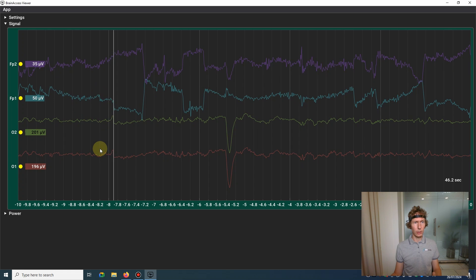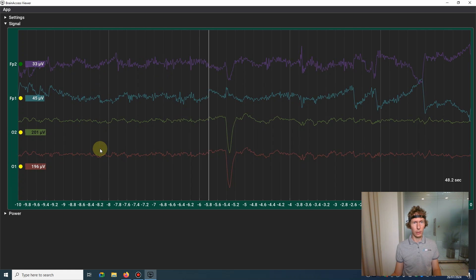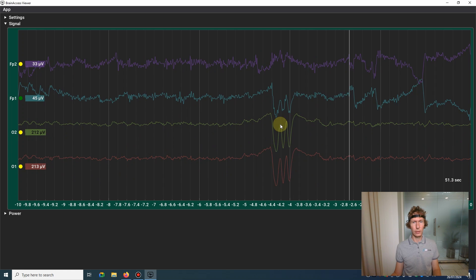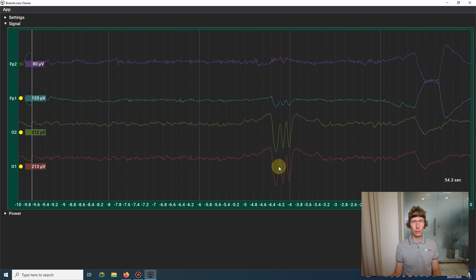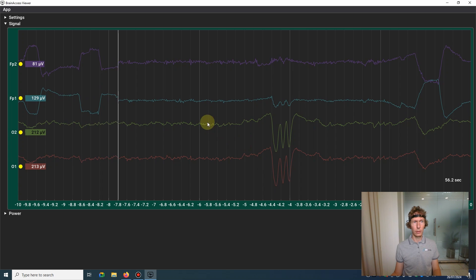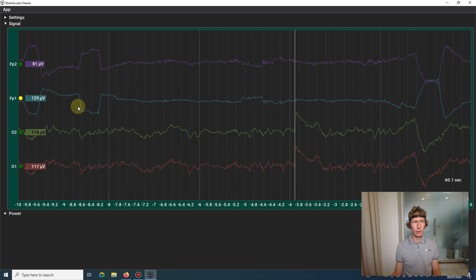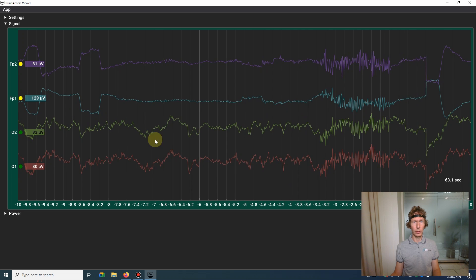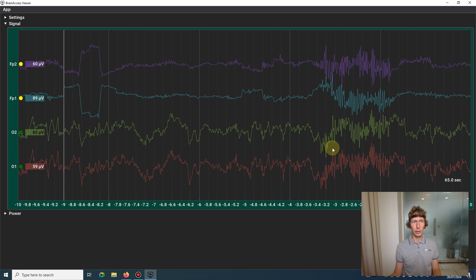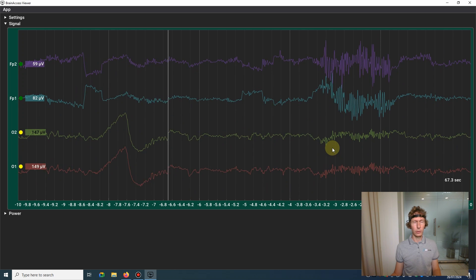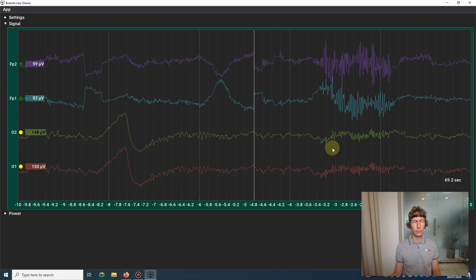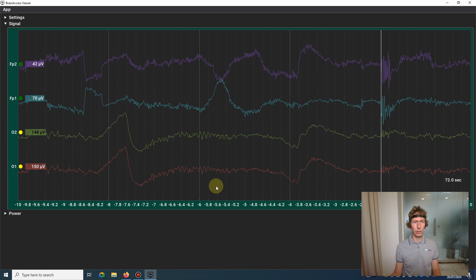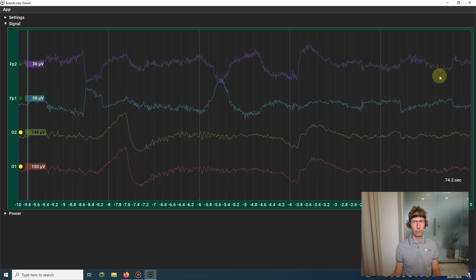Let's check if it can detect common effects. If I blink a couple of times, we can see blinks here. If I move eyes to the left and right, we can see the signal on the frontal electrodes. If I clench my teeth, it can be seen here. If I close my eyes, we can see some alpha activity here.